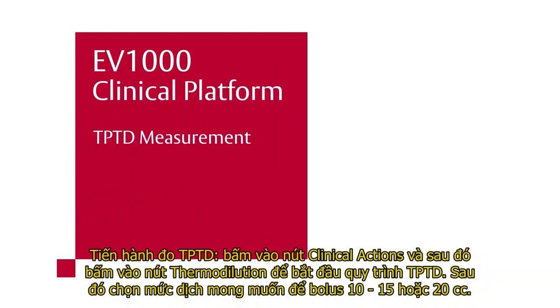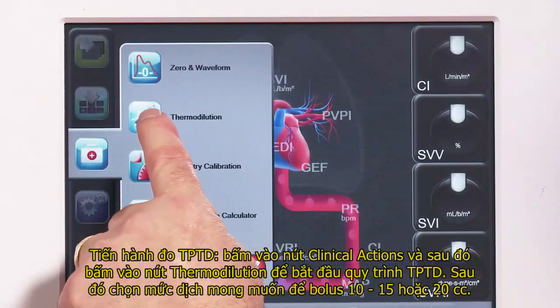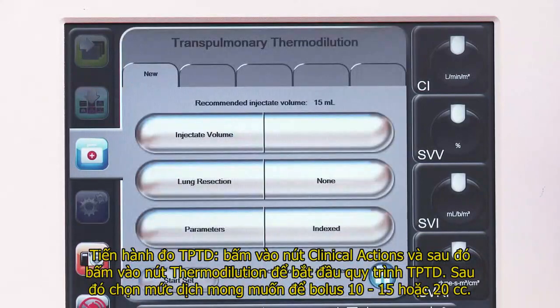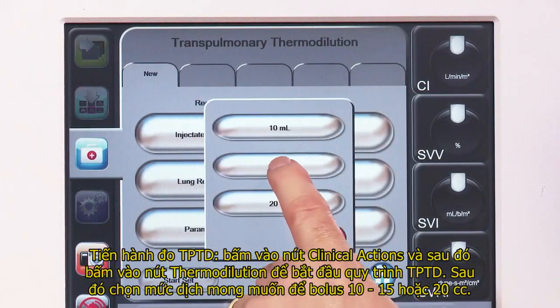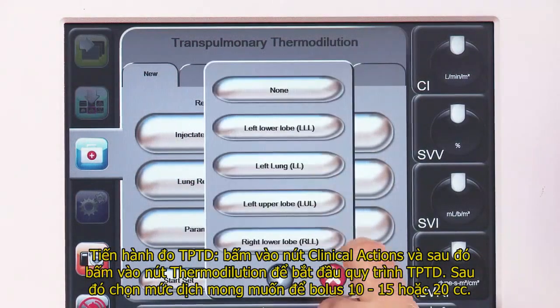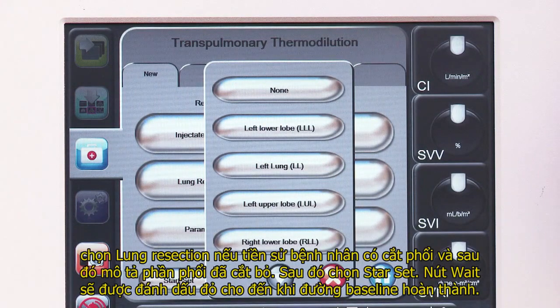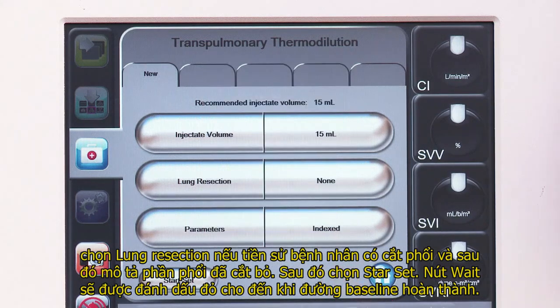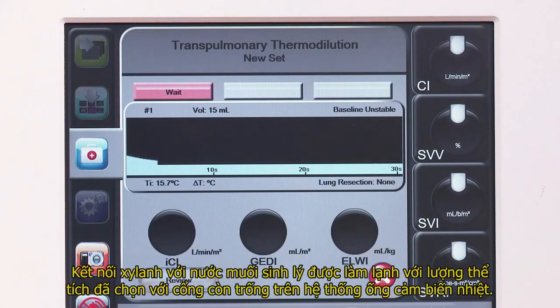Tptd measurement. Touch the Clinical Actions button and then touch Thermodilution to start the Tptd procedure. Select the desired injectate volume on the drop-down menu: 10, 15, or 20 milliliters. Select lung resection, if appropriate according to patient history, and select the descriptor of the lung portion removed. Touch Start Set. Wait is highlighted until the thermal baseline is reached.